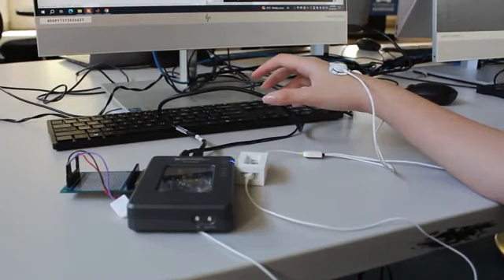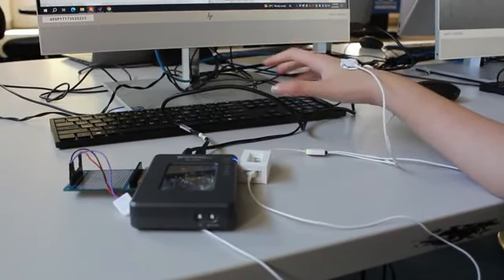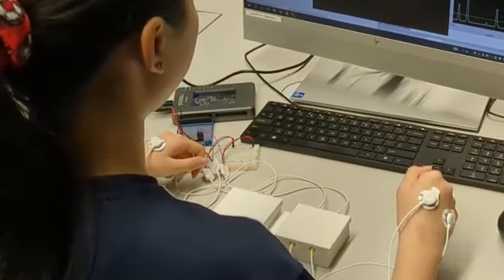The device is composed of electrodes and EMG sensors which sit within a case. The electrodes are attached to the tops of the hands and the biceps. When the muscles in the hands and the biceps contract, the electrical activity is picked up by the sensors and fed into the myRIO, which samples, filters, and processes the EMG signals.